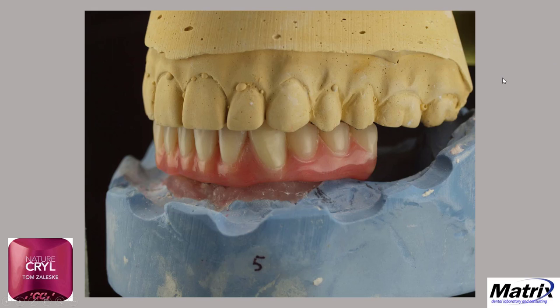These cases need to be really planned out ahead of time, and I know it's difficult for a clinician to talk a patient into second bicuspid occlusion, or an implant. And in these cases, the implants are placed. You can't go back 10 years later and put another implant in, or patients aren't going to put up with it. But we have to work with what we have. And so what we had was an extended distance, and I at least talked him into a half a molar.